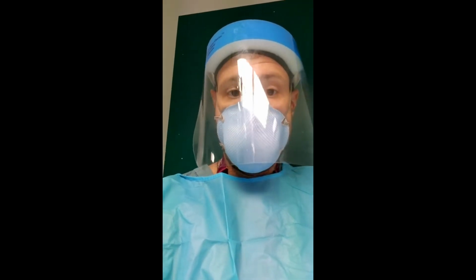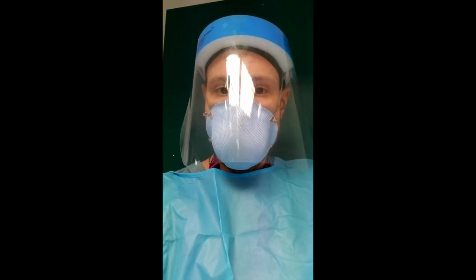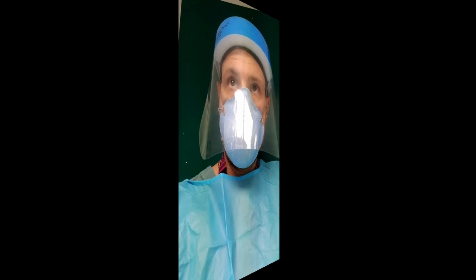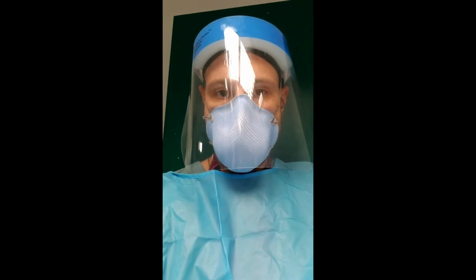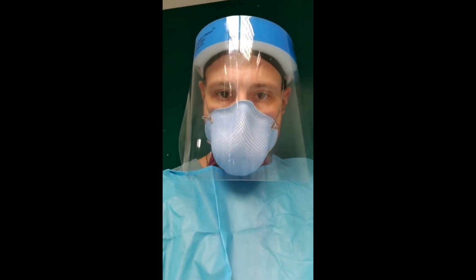But if you start with 2, let's say because they're too acidotic and you want to bulk ventilate, well, it's going to take longer to recruit. You'll have to sneak up that T high with the blood gases. So it depends how aggressive you want it. I just wanted to show you how the PulmoVista 500 can be used to individualize ventilation using APRV.